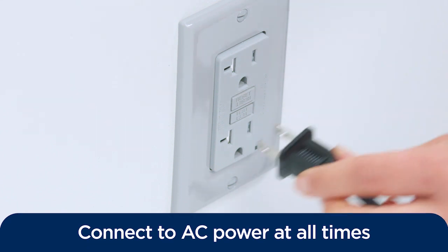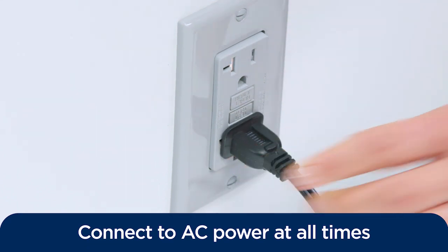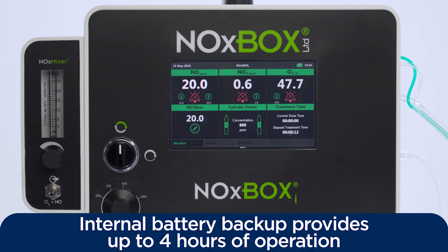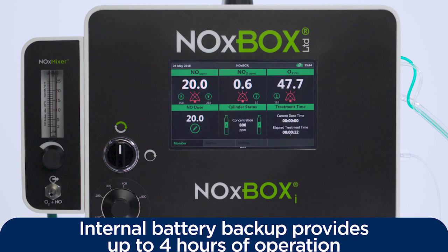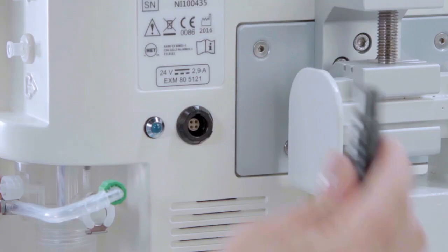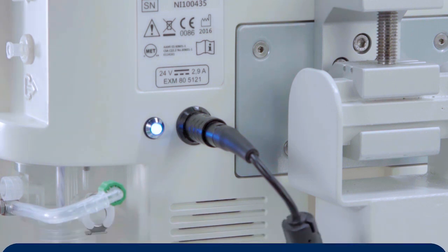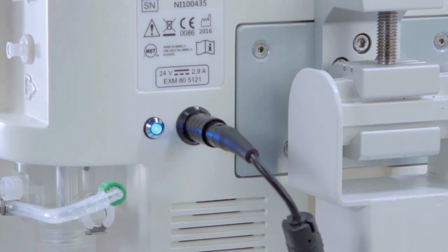The NOxBOXi device should be attached to an AC power source at all times, even while in storage. It comes with an internal backup battery that will provide up to 4 hours of operation if the AC power is interrupted. When plugged into the AC power, a blue LED light comes on to indicate that the NOxBOXi internal battery is charging, which dims once it's fully charged.